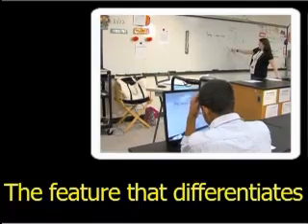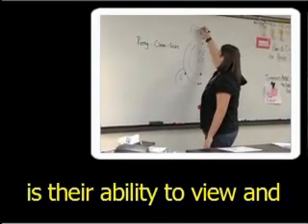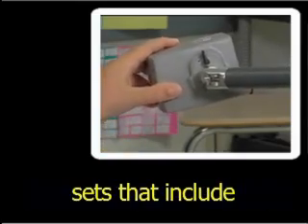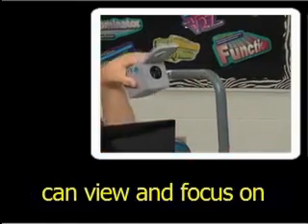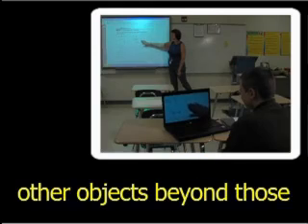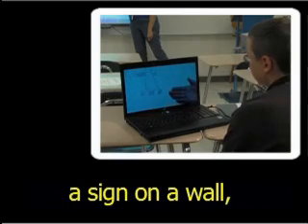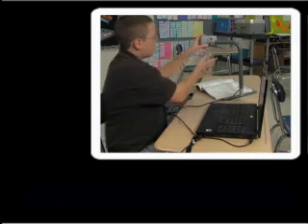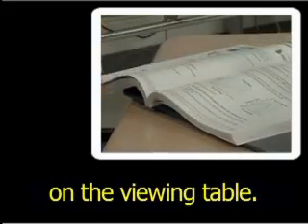The feature that differentiates FlexArm video magnifiers from desktop models is their ability to view and display objects at a distance. With a few quick and simple steps — moving the flexible arm and repositioning the camera — a FlexArm video magnifier can view and focus on objects beyond its camera stand platform, such as writing on a chalkboard, a sign on a wall, or slides in a presentation. Here, a printed sign's image 10 feet away is clearly displayed. After viewing distance information, users can quickly readjust the camera to examine materials on the viewing table.